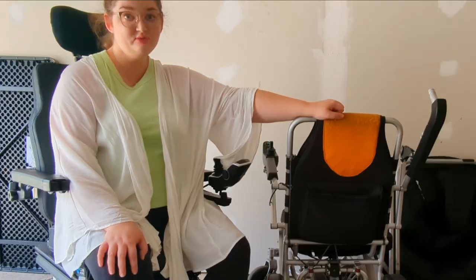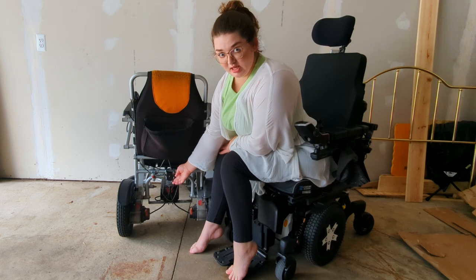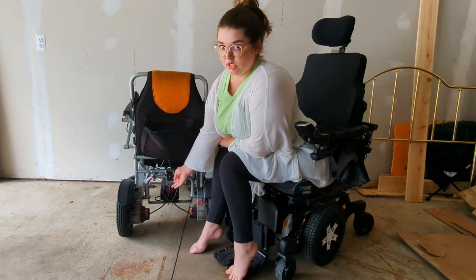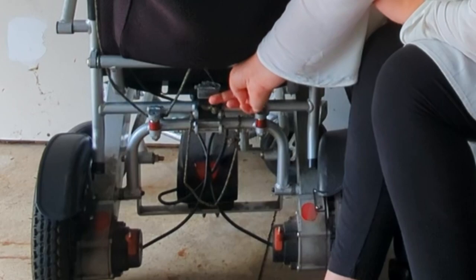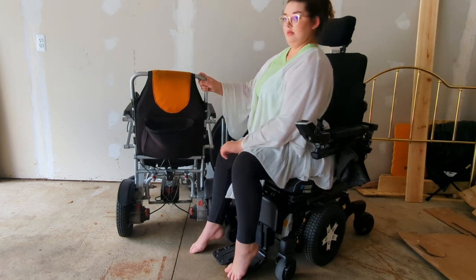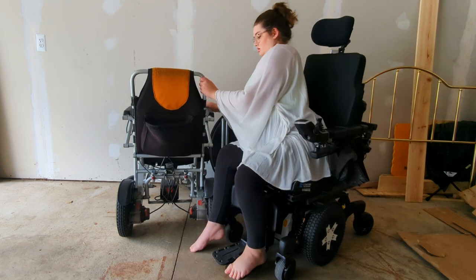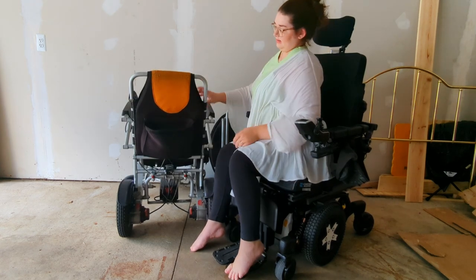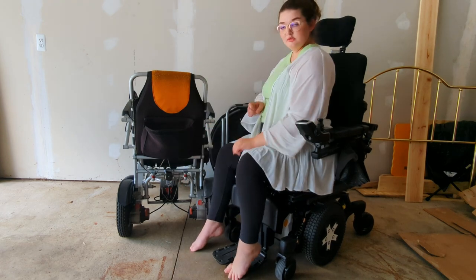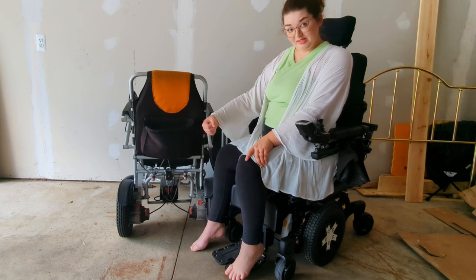This is what she looks like in the back. In the back there are several things. There's this latch right here — this is what folds the chair. When this latch is up, it's connected by a magnet, so when it latches down, the back is not going to go anywhere. But when it's latched up, the chair can fold and the back comes all the way up, then latch goes down. When I sit in it, it won't fold on me — that has certainly happened more than once where the latch was not fully connected and I just went flat on the ground.